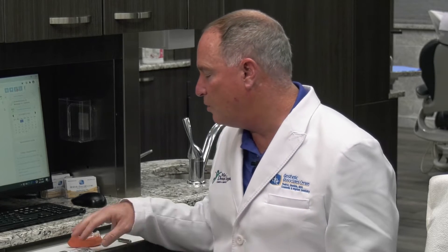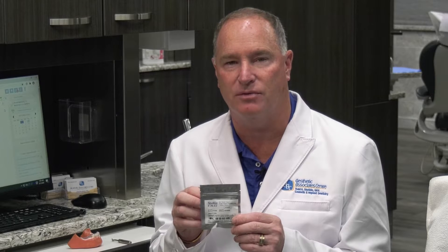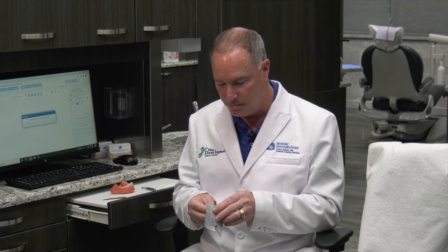Let's go over that a little bit. As you know, we use our 1.2 millimeter SPDL — the Single Patient Pilot Drill Long, that's what the L stands for. We usually use the SPDL, the Long Single Patient Pilot Drill. It's a 1.2 millimeter pilot drill and they come in an individual package — you use it for one patient. That's why it's called a single patient.